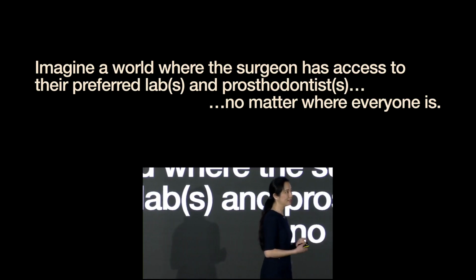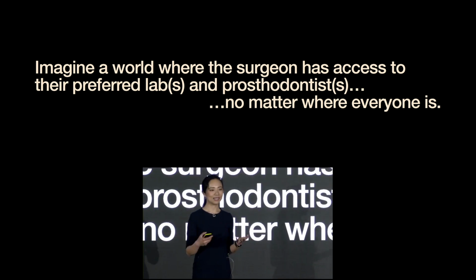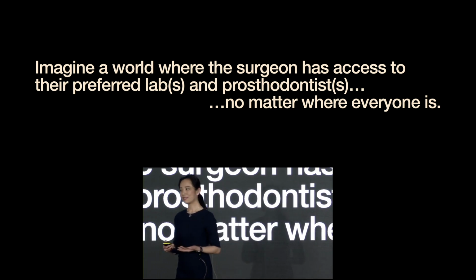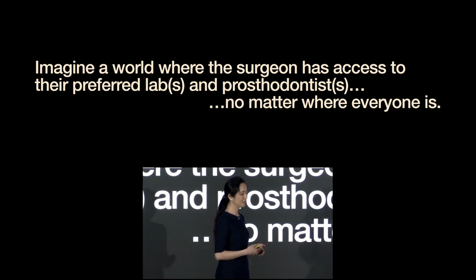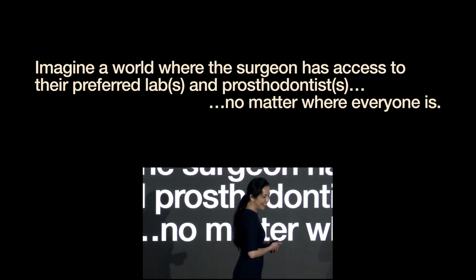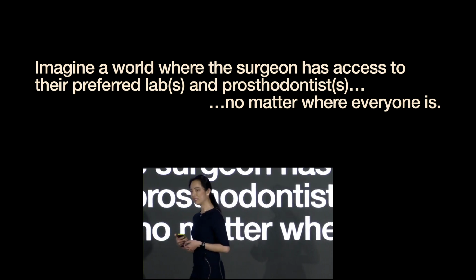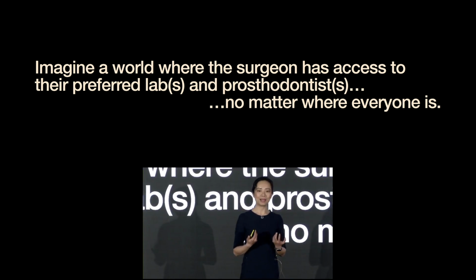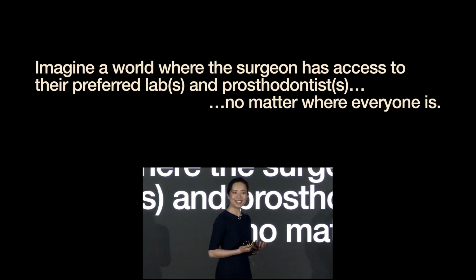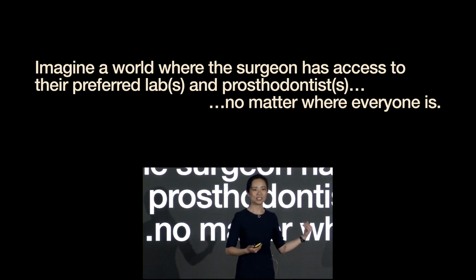So imagine a world where a surgeon has access to everyone that they want to work with without having to have them be local. This isn't the magic act I've been pulling off for the past couple of years because I moved out of state. And the amazing thing about a completely digital workflow is that the surgeons can actually send me an entire data pack and have me process it so that the first time I actually meet the patient, they're probably sedated because they're already in the chair for surgery.